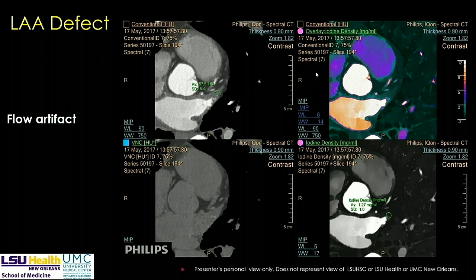Other options to resolve the filling defect include sending the patient for echo to look for thrombus, doing an MRI, or rescanning the patient — but that gives the patient double dose. The solution I call the '10-second solution' is to load up the SBI series. You get the iodine density map, a virtual non-contrast image (where iodine is removed using the dual energy spectral effect), and a fusion map. Here we see presence of iodine, and dropping an ROI in that area shows 1.27 mg/mL of iodine — confirming this is a flow artifact, not a thrombus.